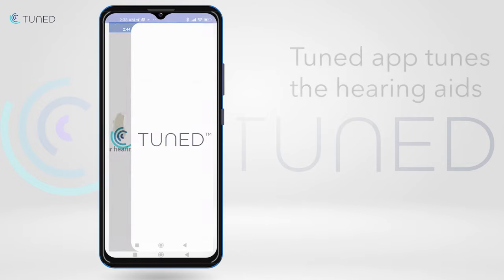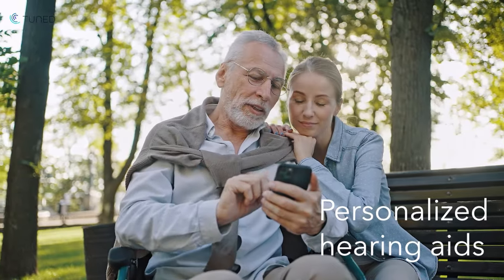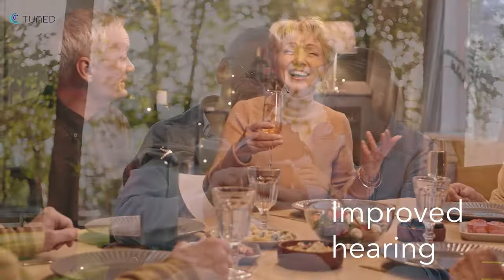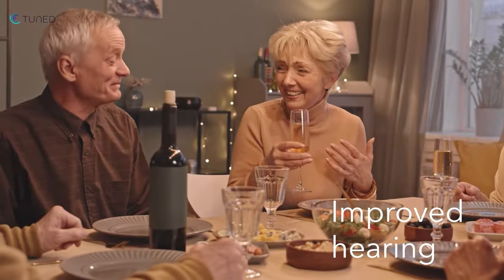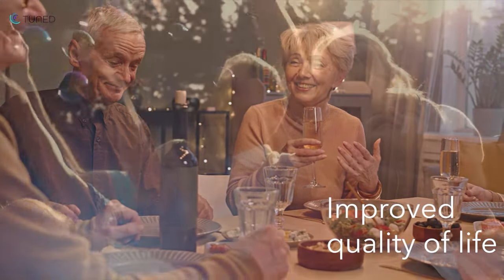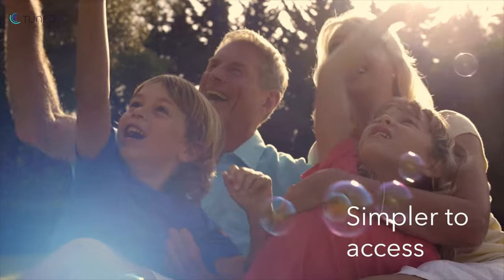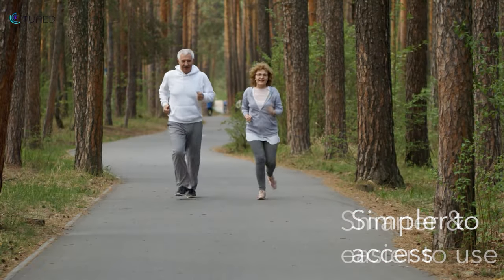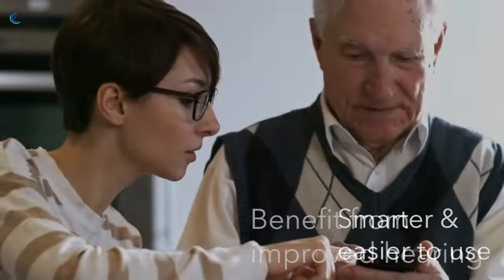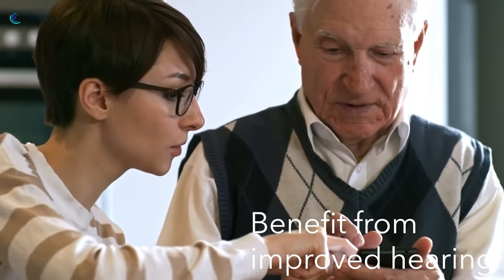That concludes the process. Users can now take advantage of their personalized hearing aids and experience improved hearing and an improved quality of life. At Tuned, we're dedicated to making hearing aids simpler to access, smarter, and easier to use, so that anyone with hearing loss can benefit from improved hearing.